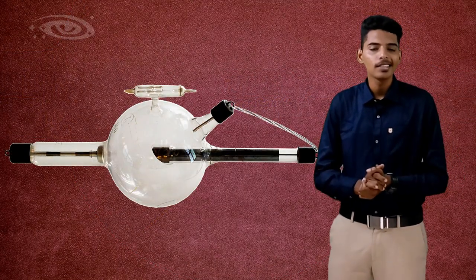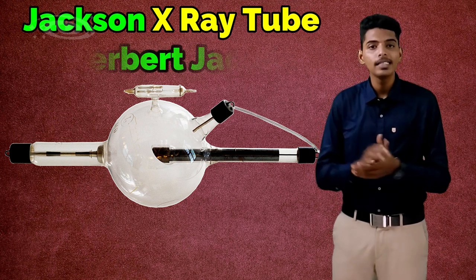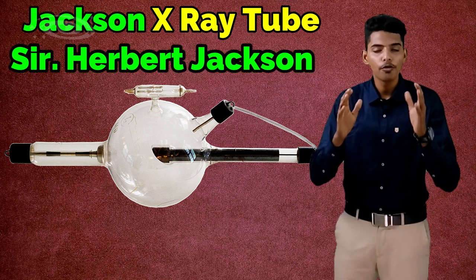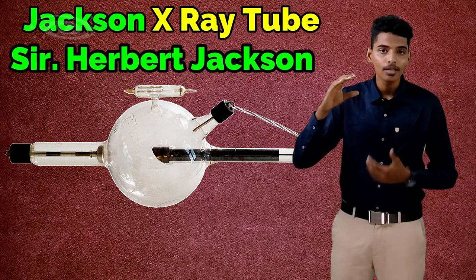This gas-filled x-ray tube is also called the Jackson x-ray tube, because Herbert Jackson is a physicist who first introduced the cup-shaped cathode inside the tube. Now we'll see about the anode.